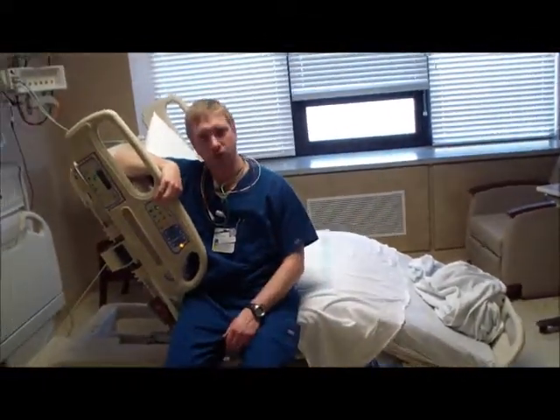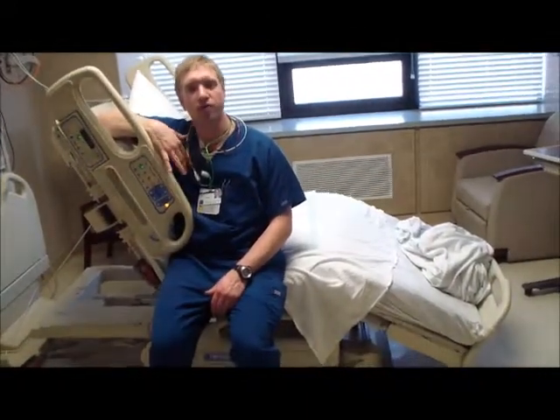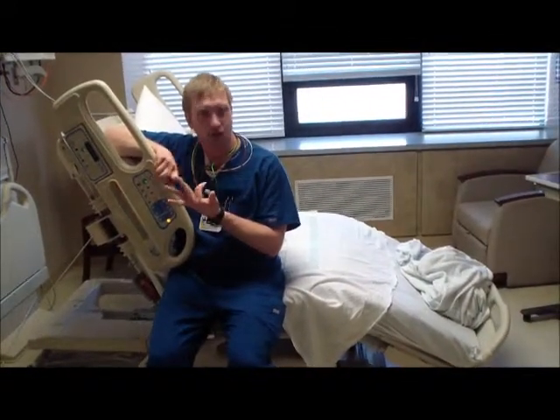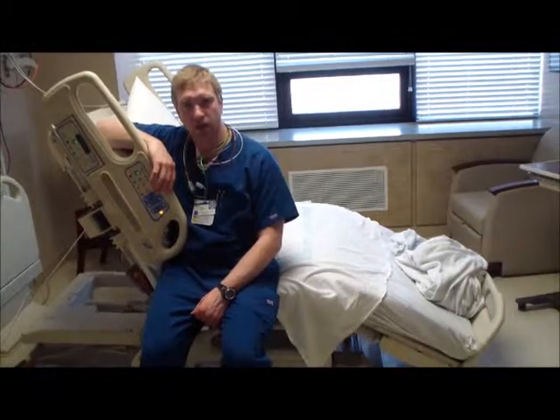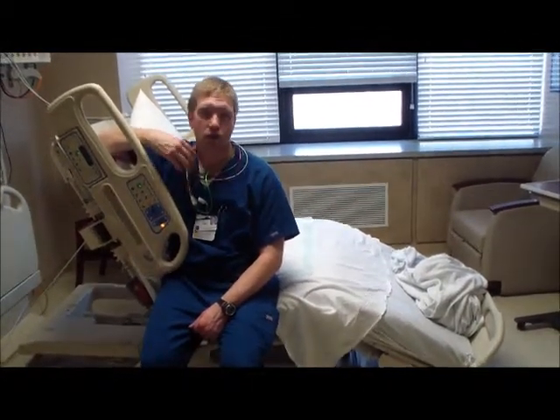And this puts a patient in a good position where if they're not able to get up and down to a chair, they're able to at least have their body start resisting gravity to start improving their blood pressure, their oxygenation, their tolerance to activity, their balance, all sorts of things that can really help a patient with their outcomes and improving their ability to go home or do better with rehab.